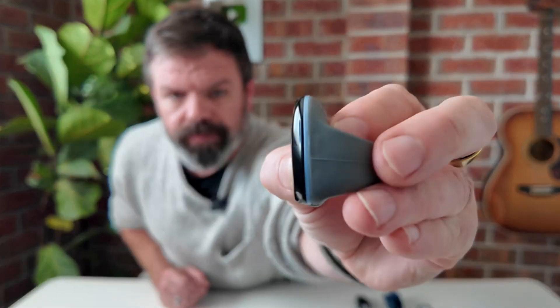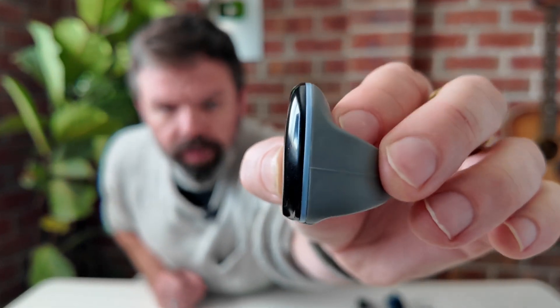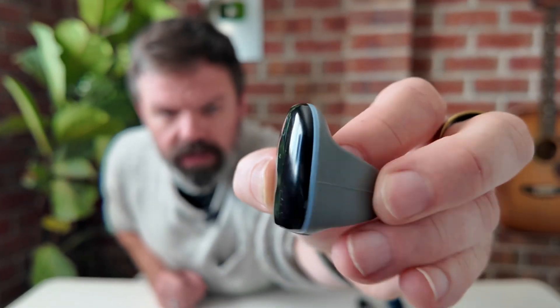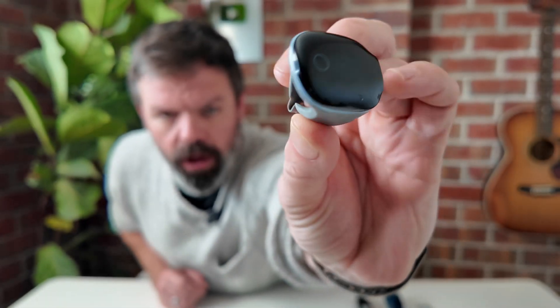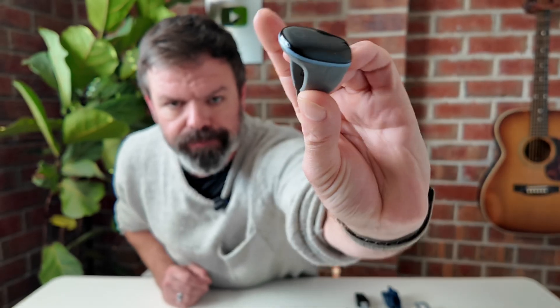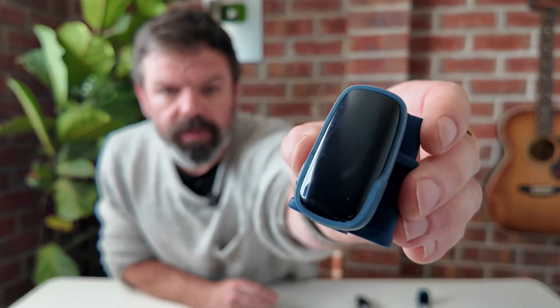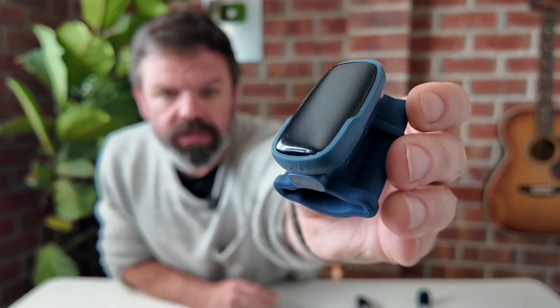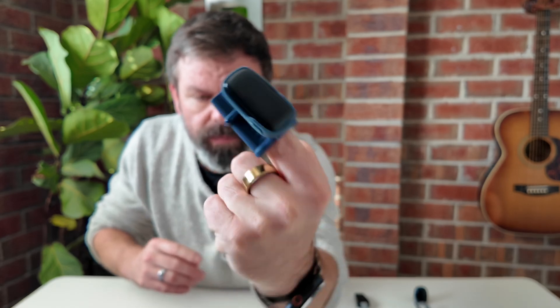There's lots of different devices that are compatible. They are all Viatom devices. However, different companies white label these devices, including us. So this one here is the Gen 1. You see, it's got a little blue band around the outside. This is a Gen 1 O2 ring. Now, when it comes to this ring, you can get it wherever you like. It will be compatible with Sleep HQ.